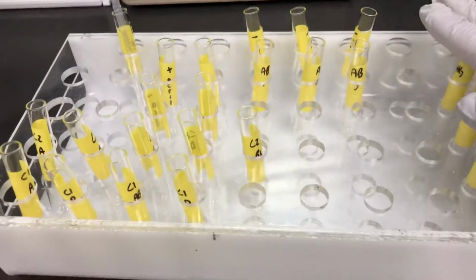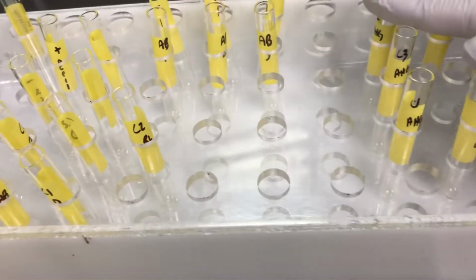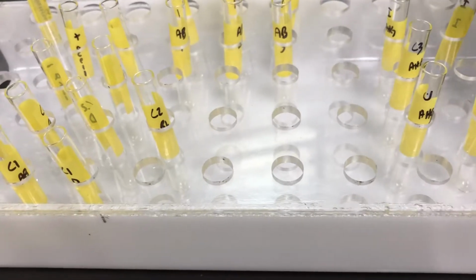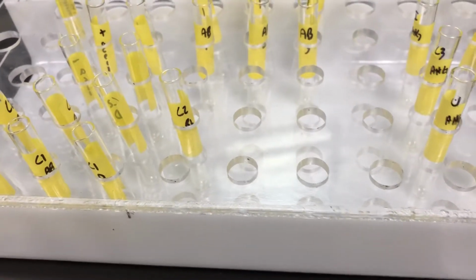So we would just choose like an A cell or something like that. We here do not do differential QC unless we get a positive polyspecific. So this is just the QC to check our reagents and confirm that.